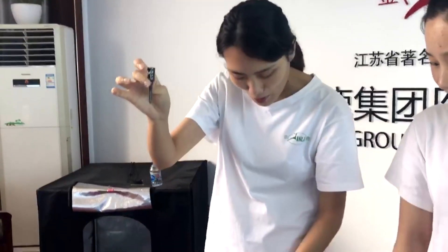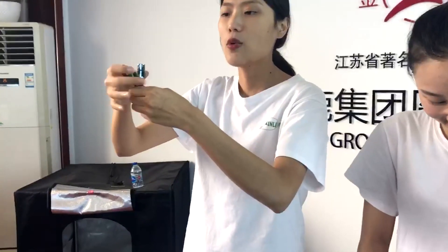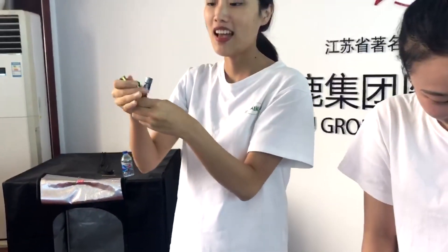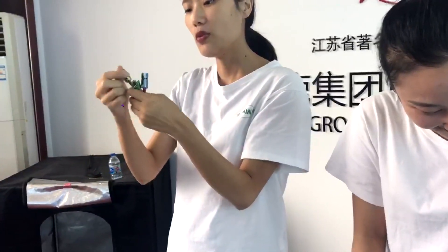This one is a breakable polyaxial pedicle screw, and this one is a breakable monoaxial pedicle screw. We also have the old design — this one is a breakable polyaxial, and this one is the breakable monoaxial.